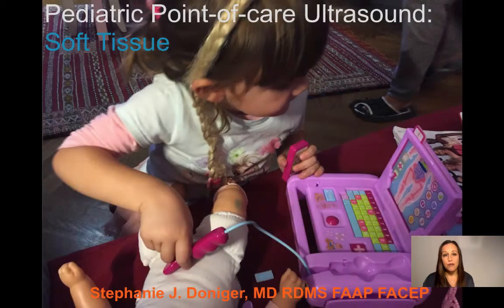I'll be speaking with you today about pediatric point-of-care ultrasound and the use for soft tissue applications. This is actually one of the most common applications that we use in the pediatric population.